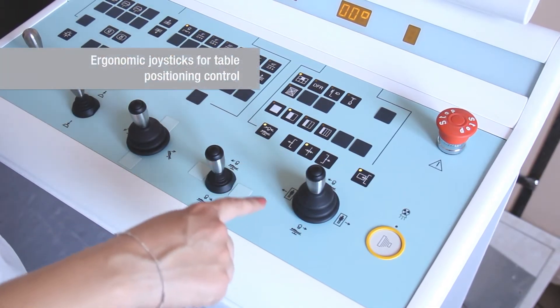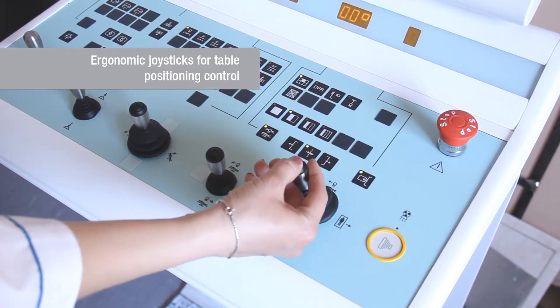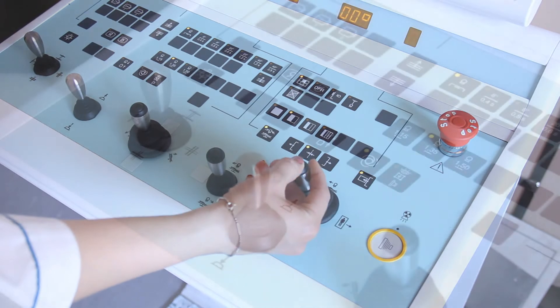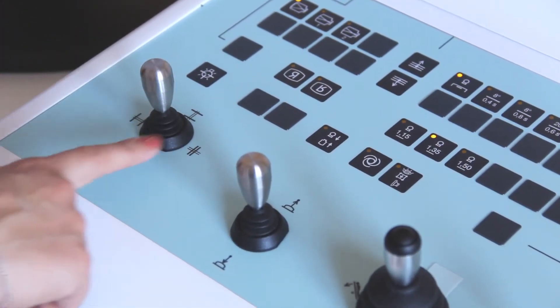Joystick for patient position adjustment during a scanning process, joystick controlling the shutter, joystick for compression tube control.